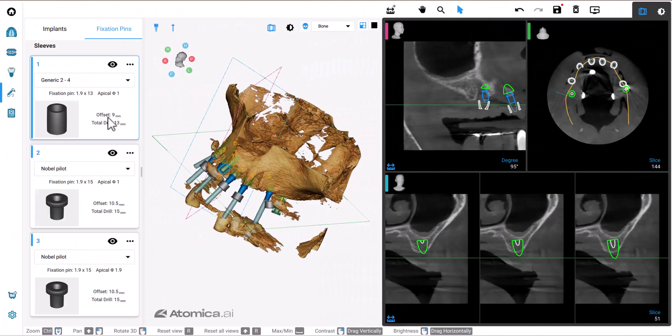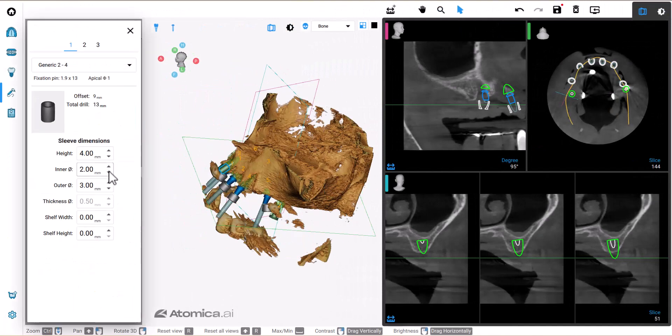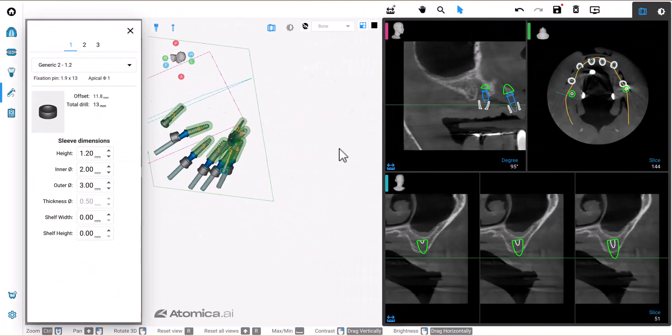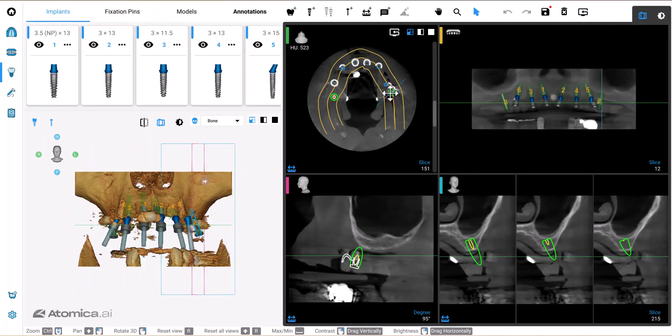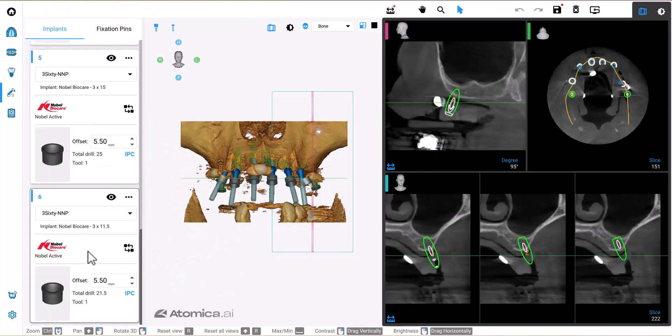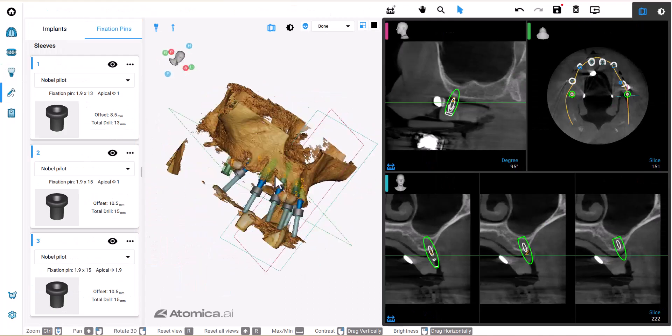Now the plan is ready, and remember you can always have a full detailed report containing all the plan details.